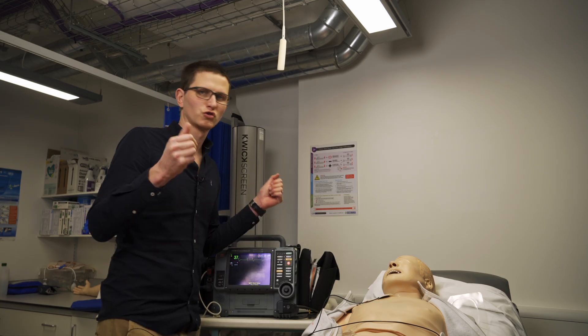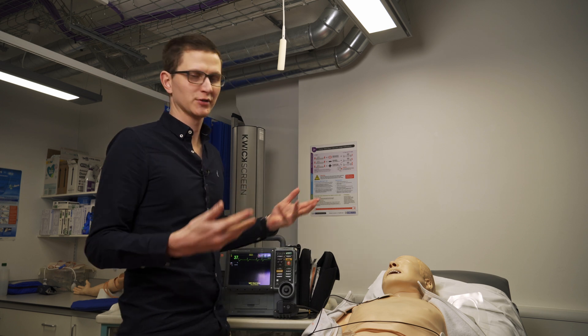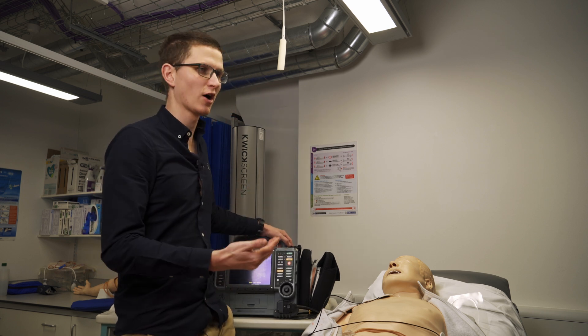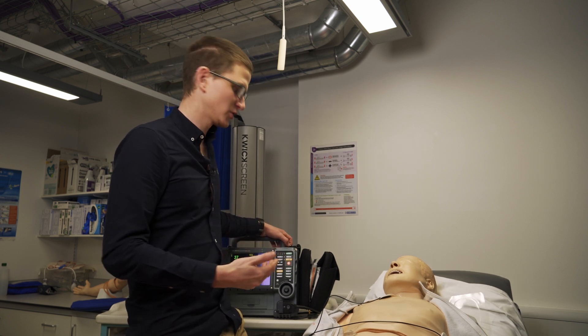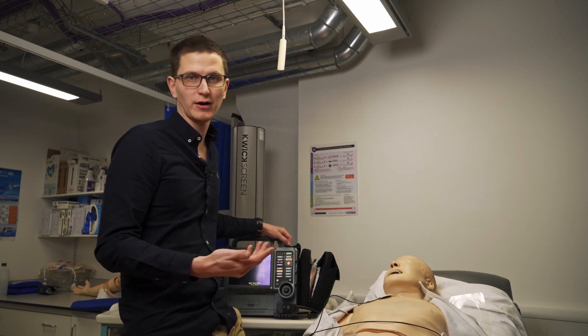So what is pacing? Pacing is when we shock the heart at a controlled rate to make it speed up. So if someone's in a bradycardia, such as a third degree heart block and atropine is not working, that is when we're going to pace.